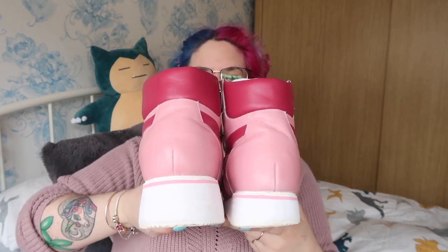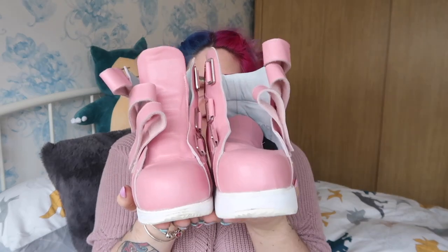To be fair, it's a lot easier for me to get my feet in and out of these because the whole of the front of the shoe comes down. So it's really easy for me to get my foot in there and then Velcro them up — quite handy. So I went for this baby pink and then a dark pink for the sides. As you can see, they are built up for me. This one counteracts the way my foot turns; this one counteracts my leg length discrepancy. There is a big difference in them, but the way they're built, once they're on they're level, so it all works out.